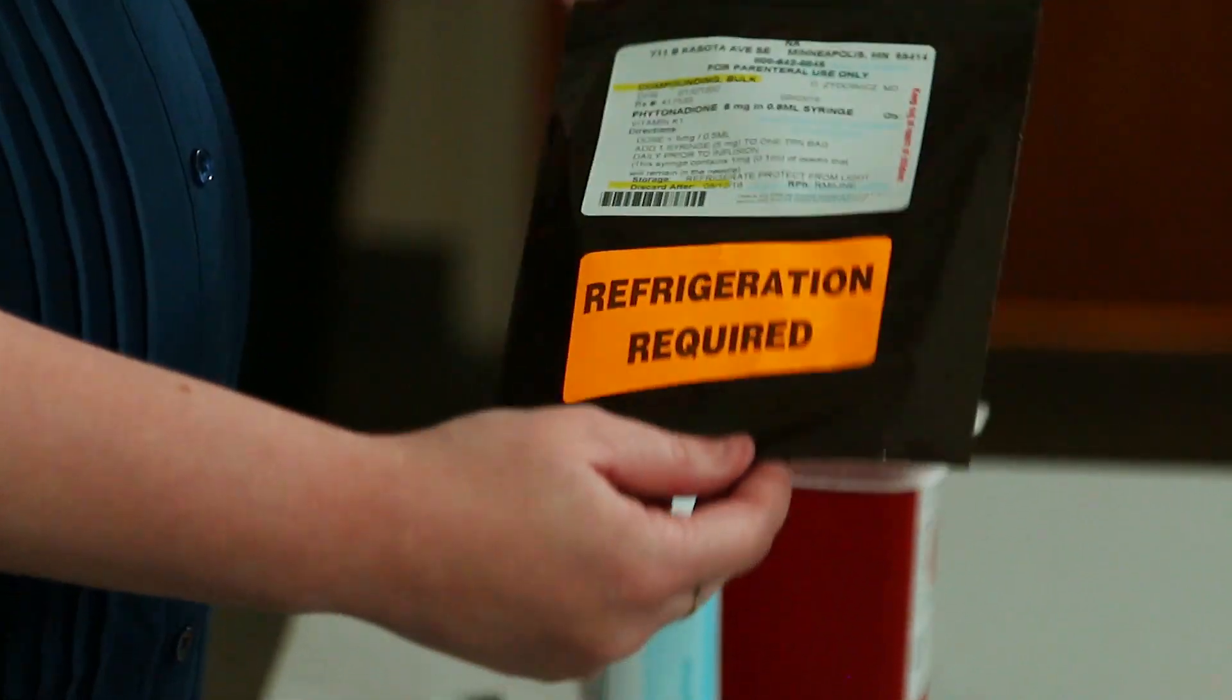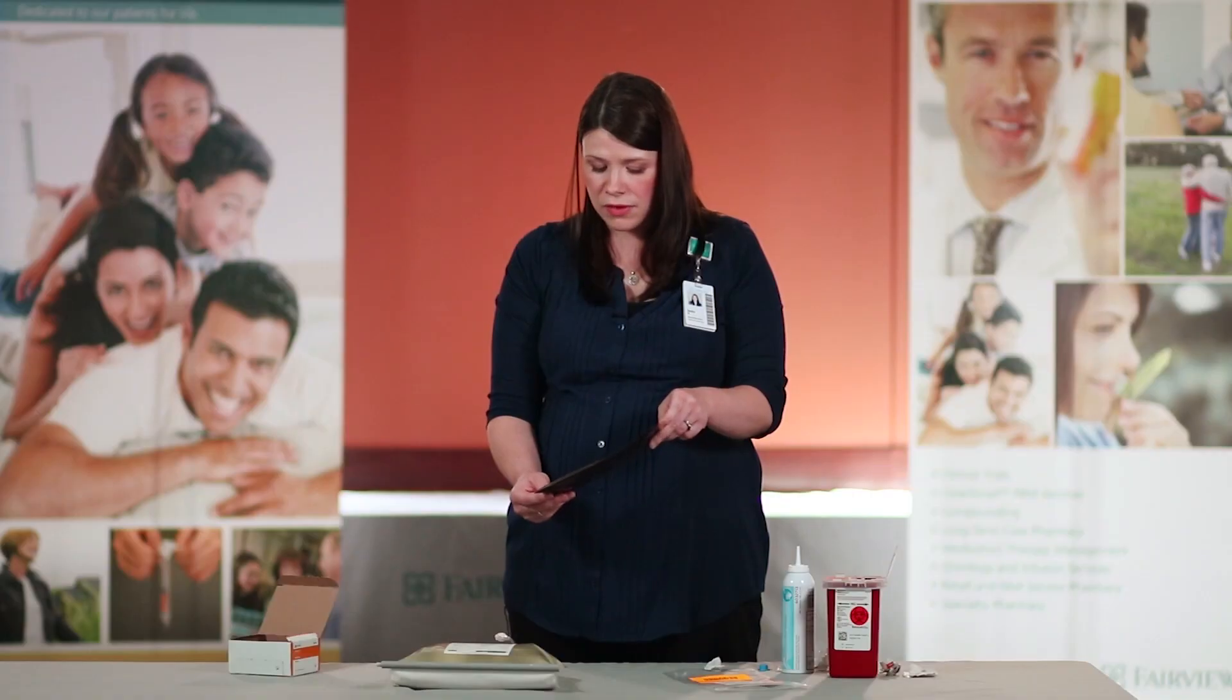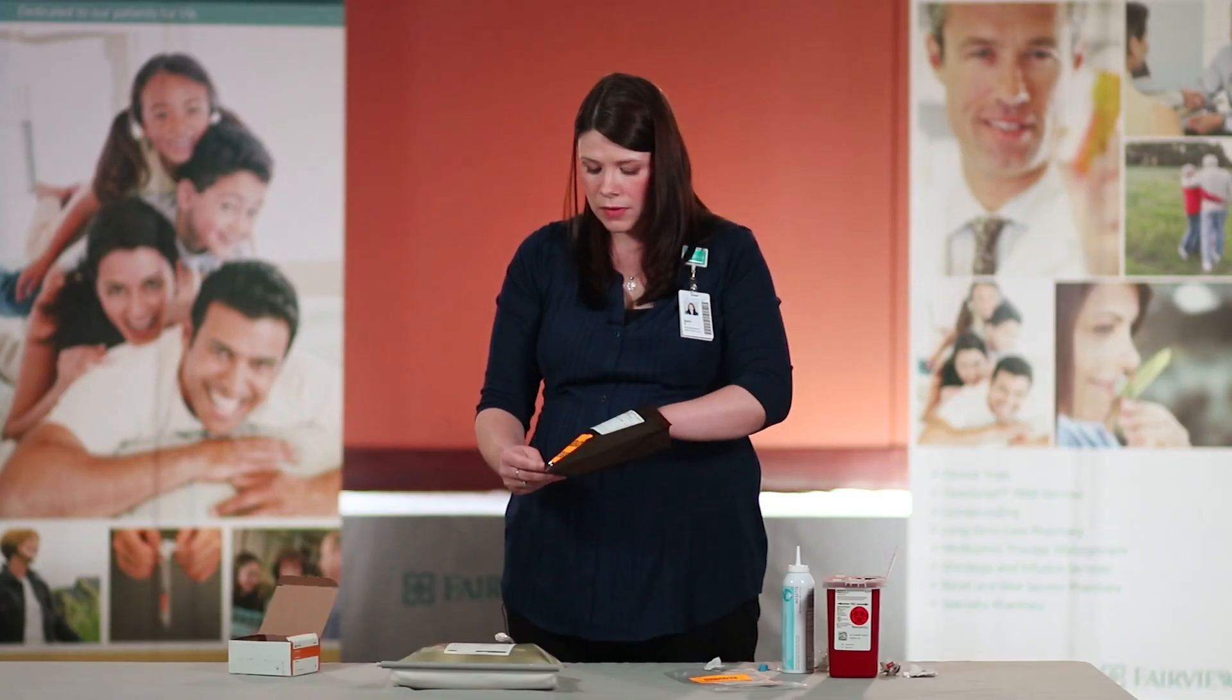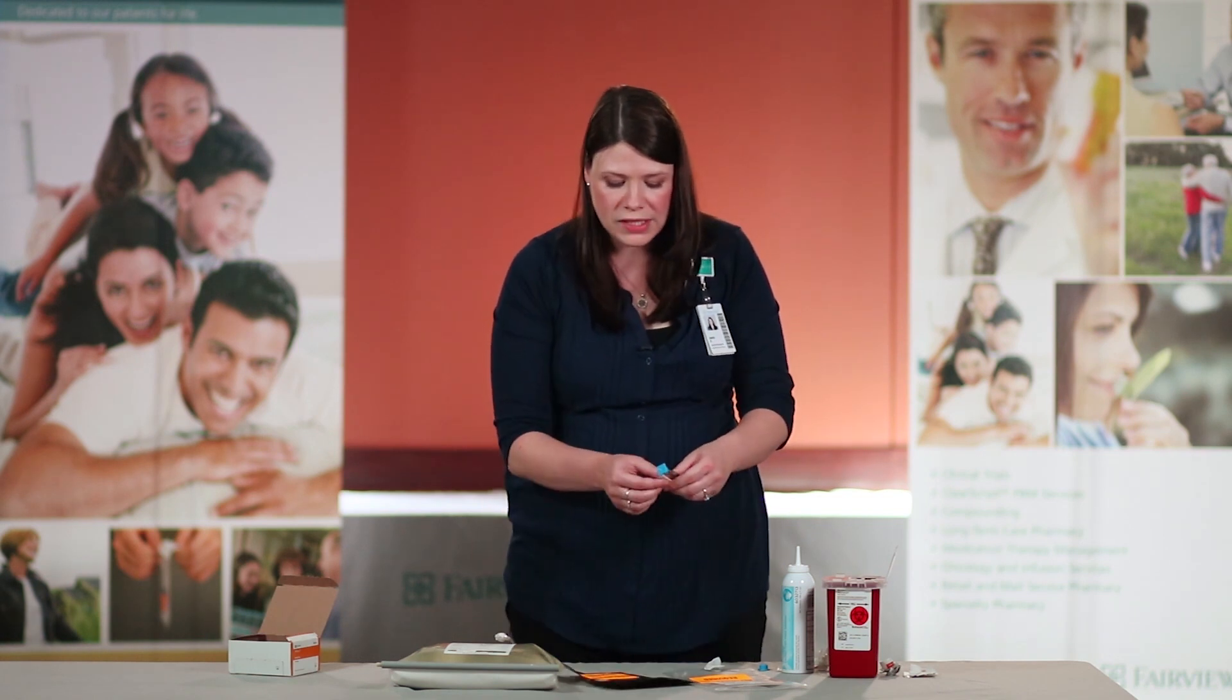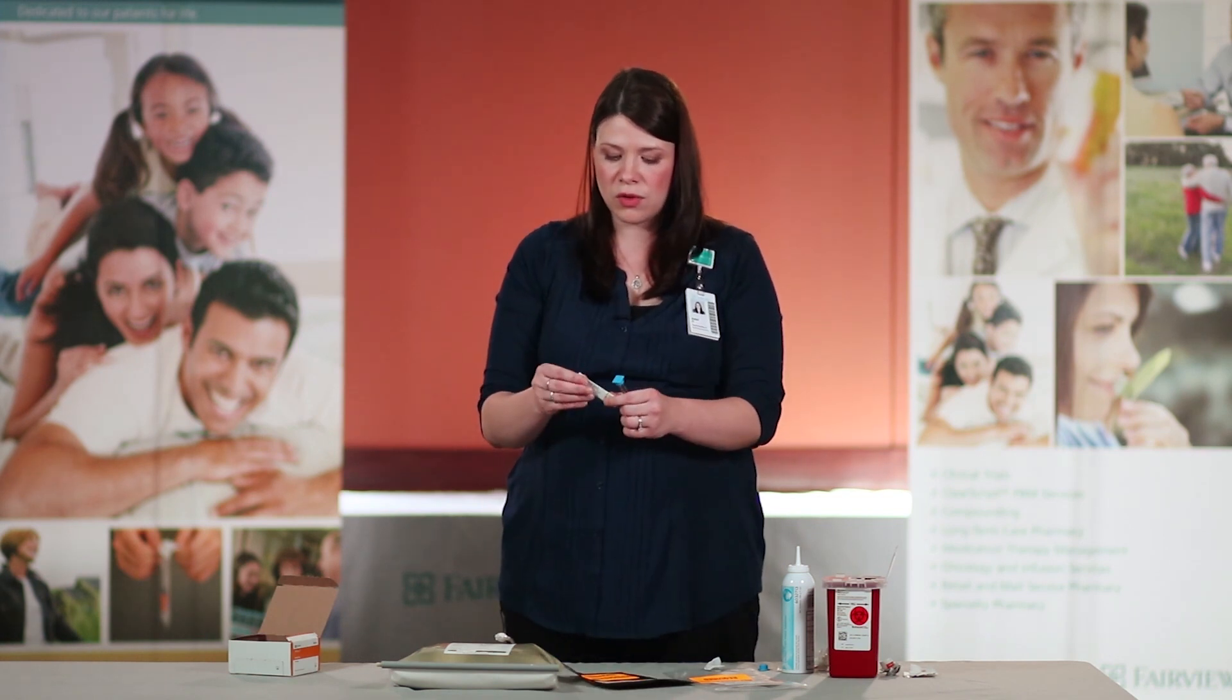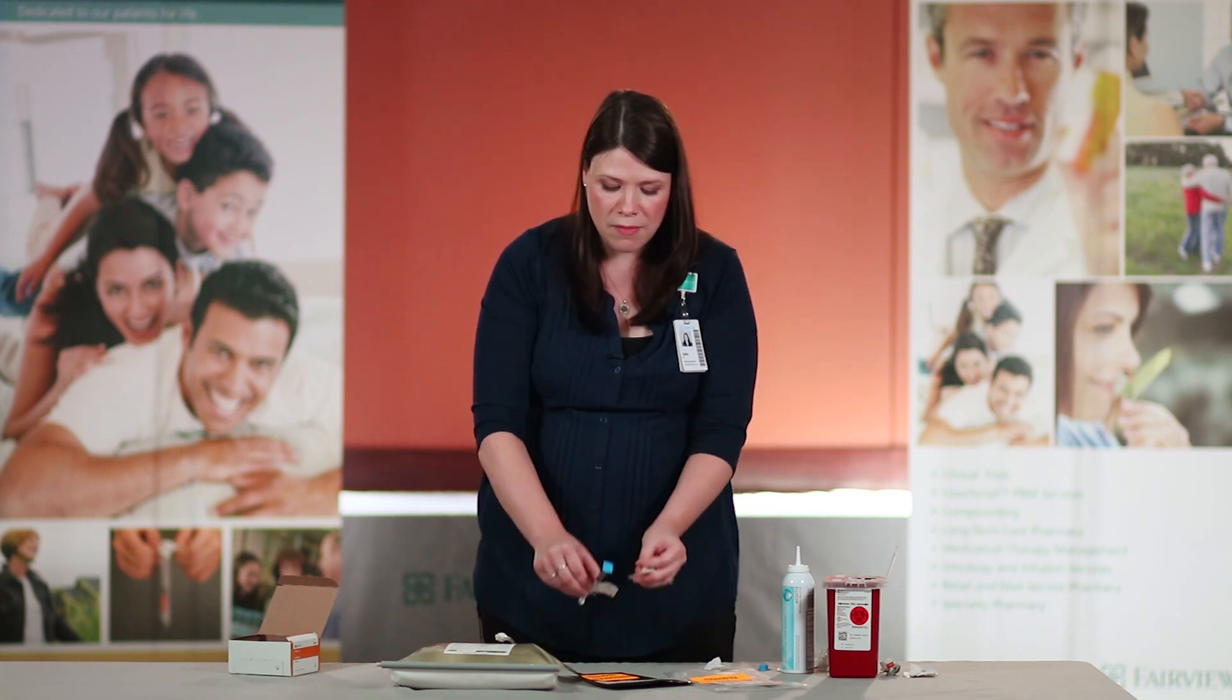Your vitamin K will come in a brown bag to protect it from sunlight. Once again, your medication along with a one inch needle will be in the bag.